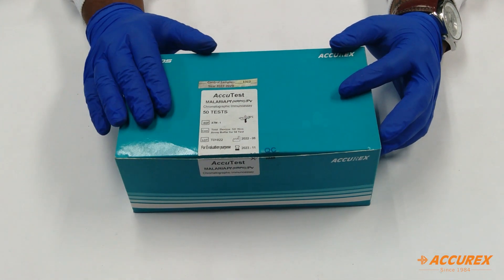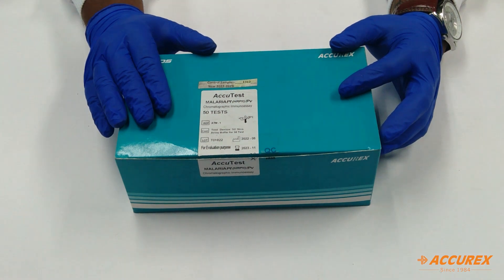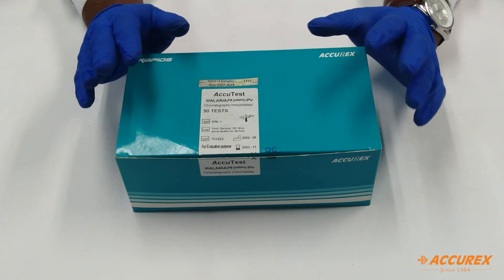So basically this is a 50 card test used for the detection of malaria infection. Basically to identify the species called Plasmodium falciparum and Plasmodium vivax in the blood sample.